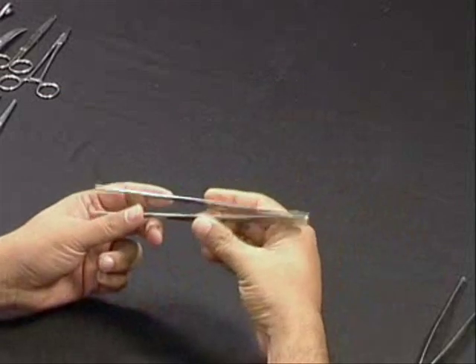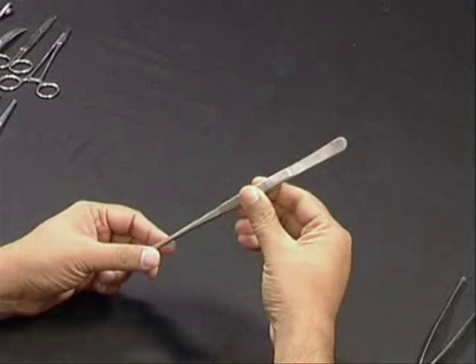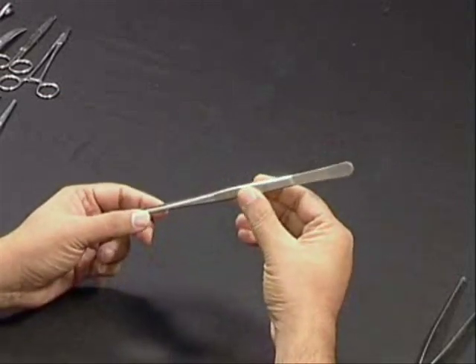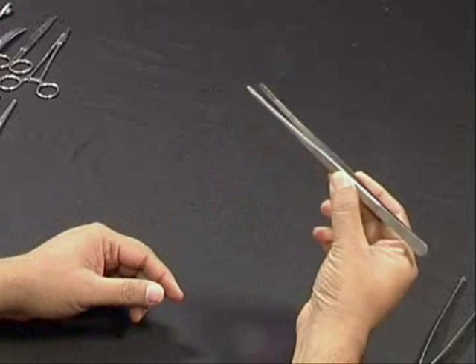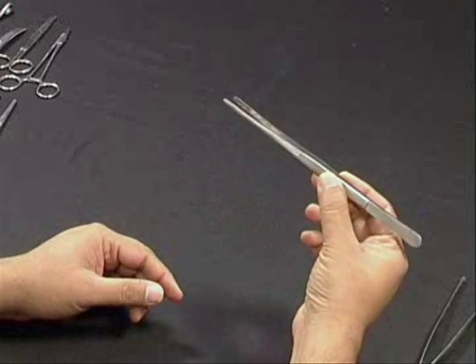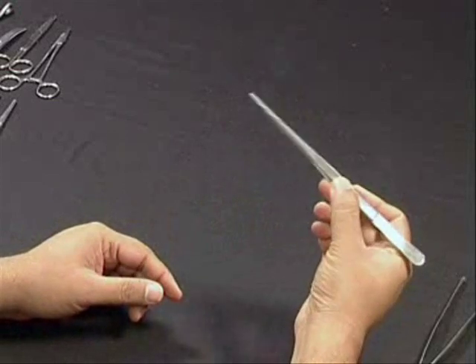You may be asked how to hold a dissecting forceps, and you should know that you have to hold it like you would hold a pen, between your thumb and your index finger.